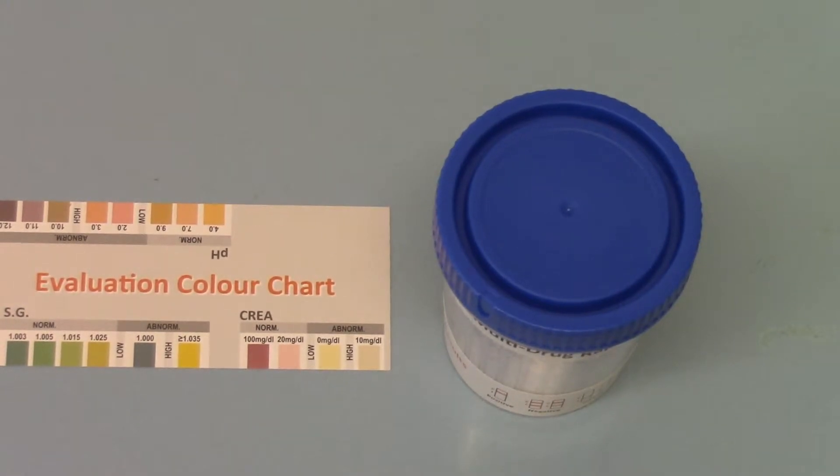Welcome back to the final part. We're just going to run you through how to interpret and read the adulteration test strips.